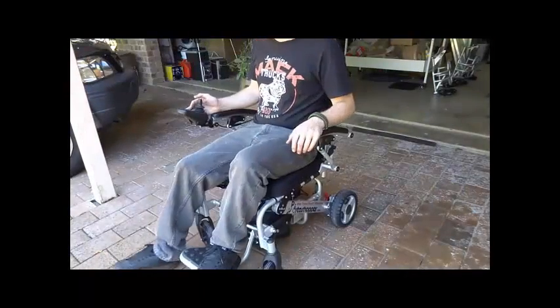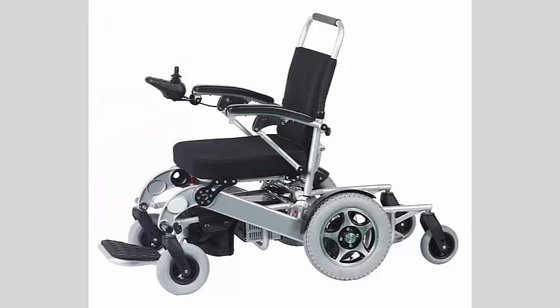However, the Portashopper Grand and Super Grand Mk1 do have the ability to drag a small custom built trailer which can carry an extra passenger or suitcases, making it very convenient for going to the airport or for when both partners suffer from limited mobility.